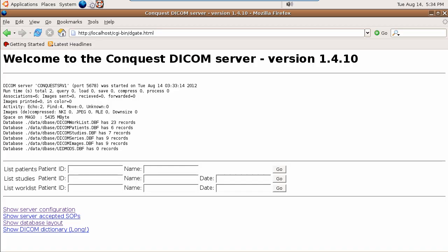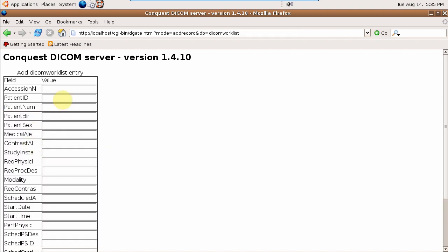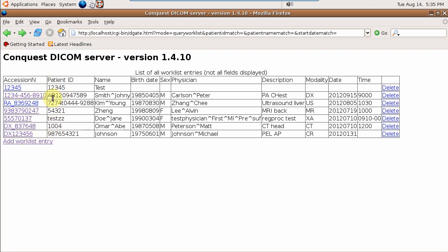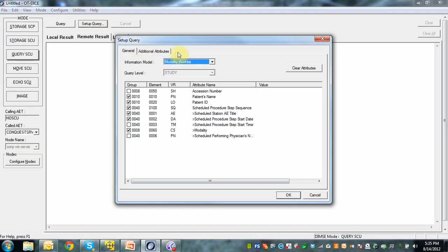Conquest itself is quite cool. Here you see the welcome screen of the Conquest DICOM server — it's a slightly older version but basically the same. When you look at the server, there are different things you can do: you can manage the patients, the studies, and the worklist, which is what we want to concentrate on. I've created a couple of test patients — I have seven patients. It's very easy to create another worklist entry by clicking Add Entry, typing in all the information, and it will automatically be added. So we have seven entries in our worklist to query for.